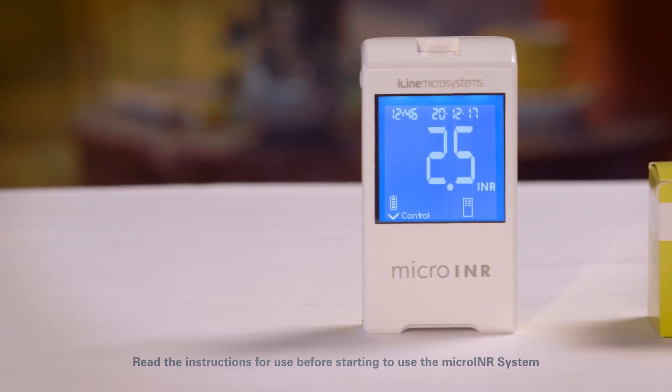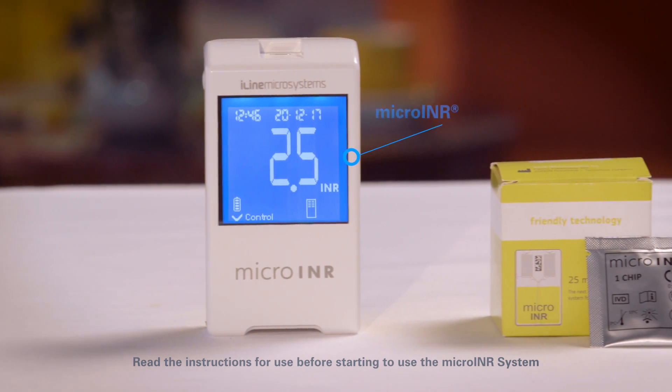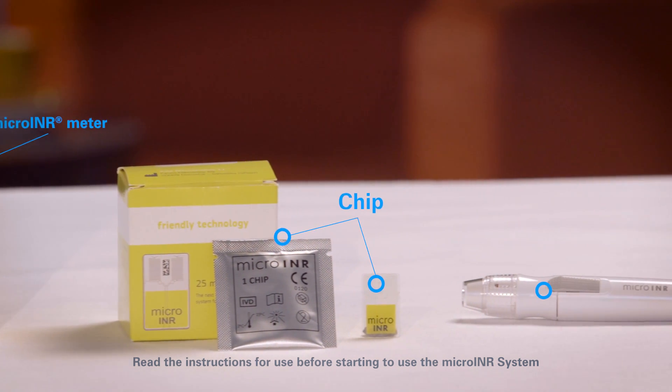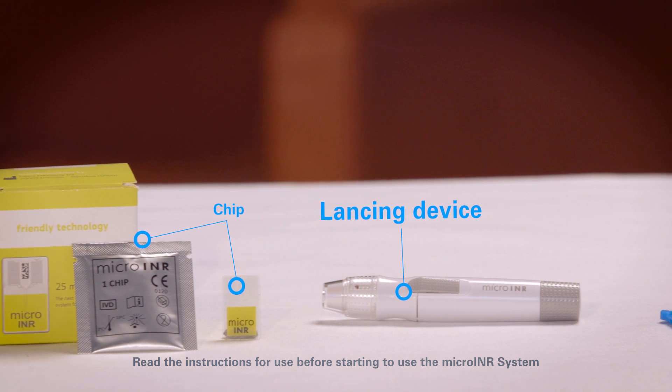But first, we're going to show you what you need to perform a measurement. A micro-INR meter, a micro-INR chip, and the lancing device with lancets.